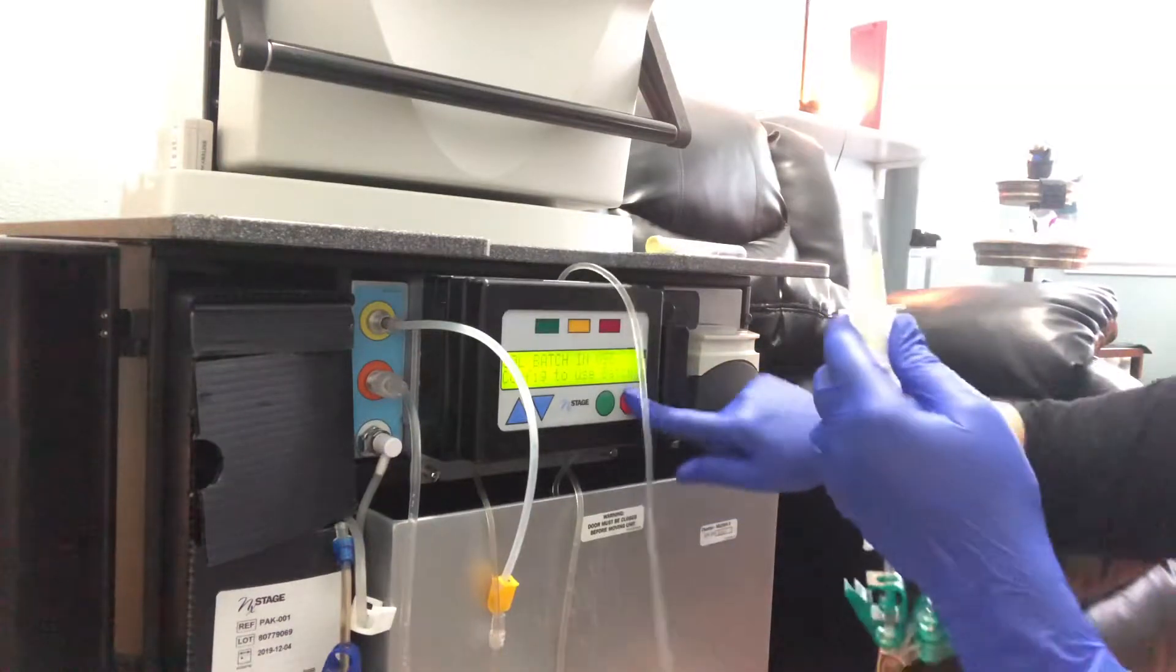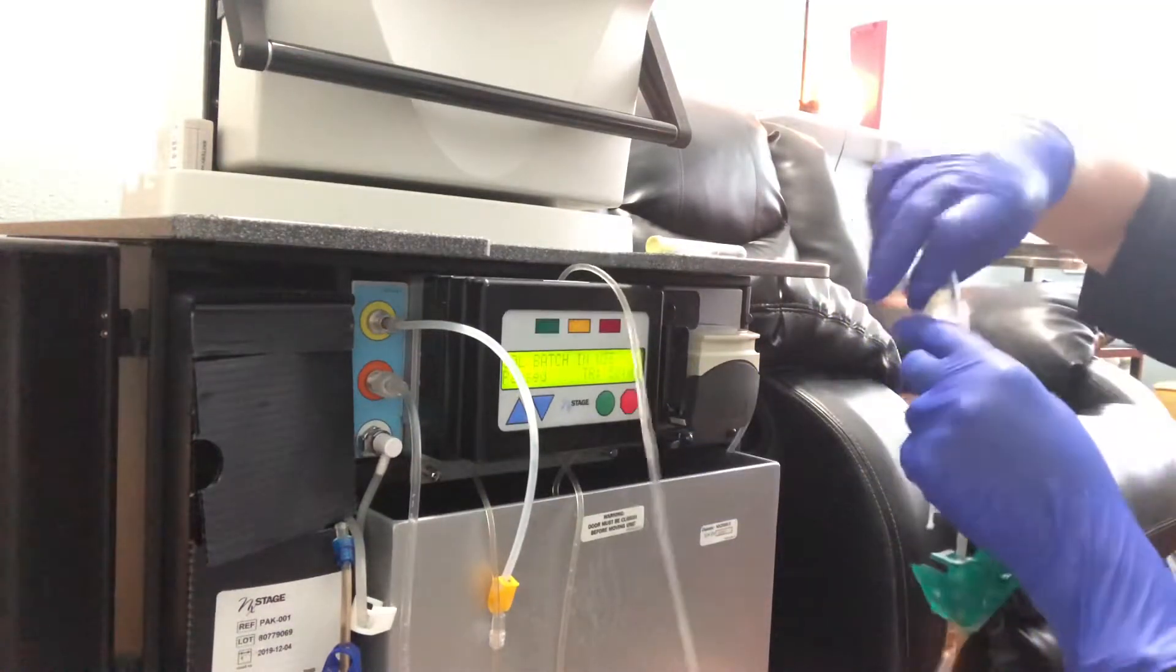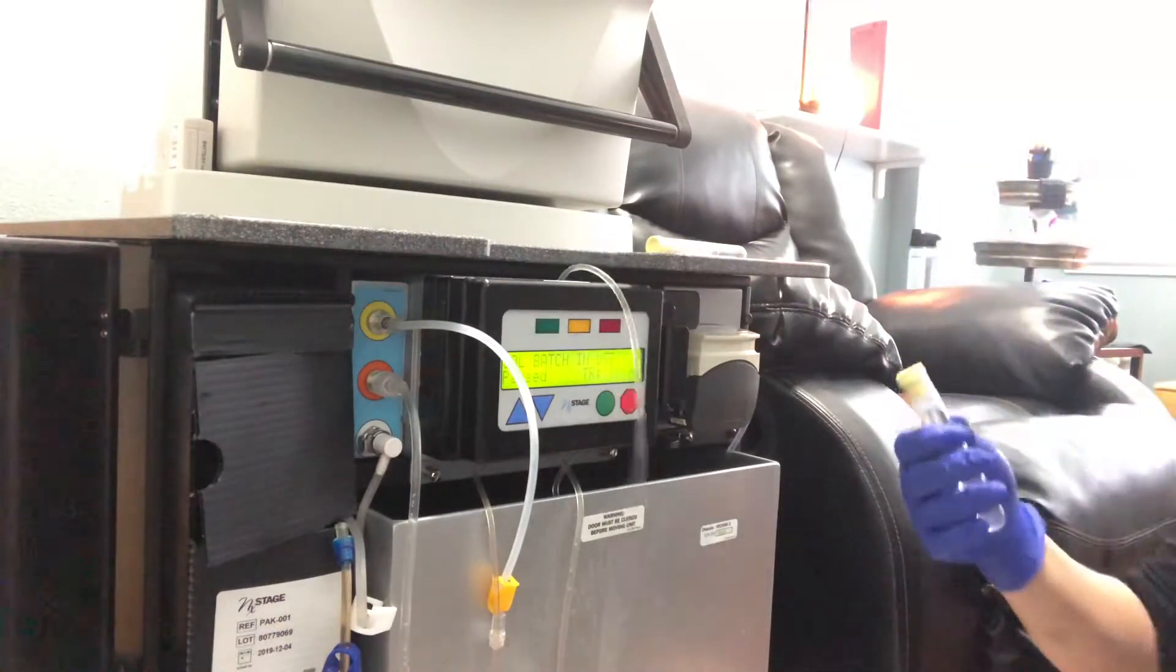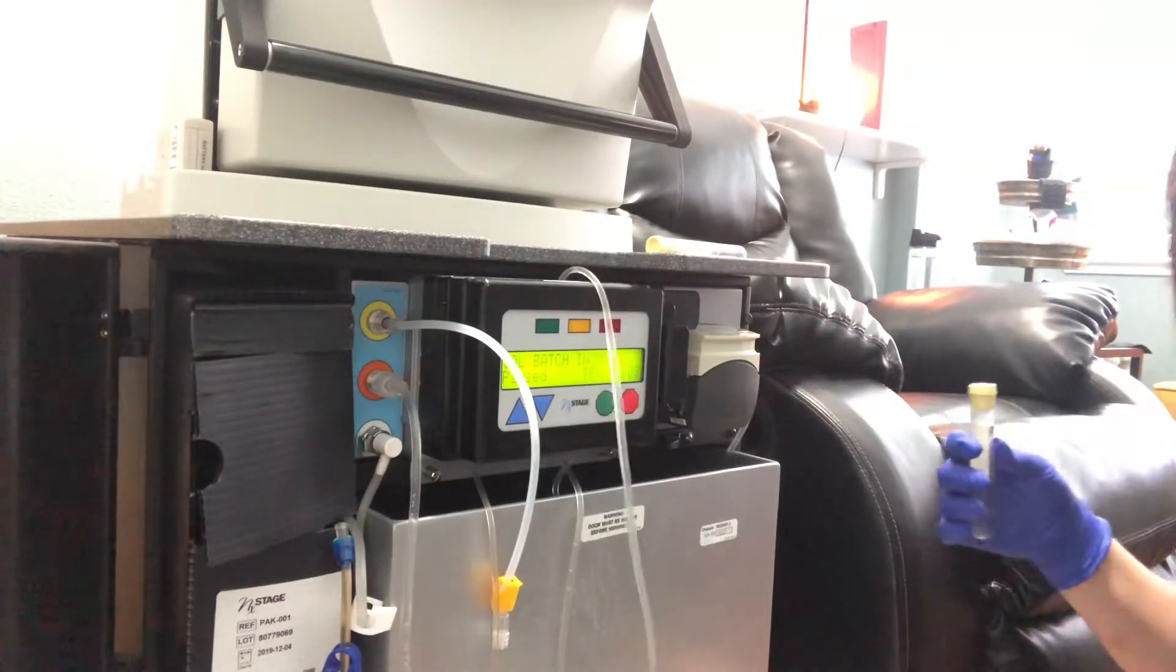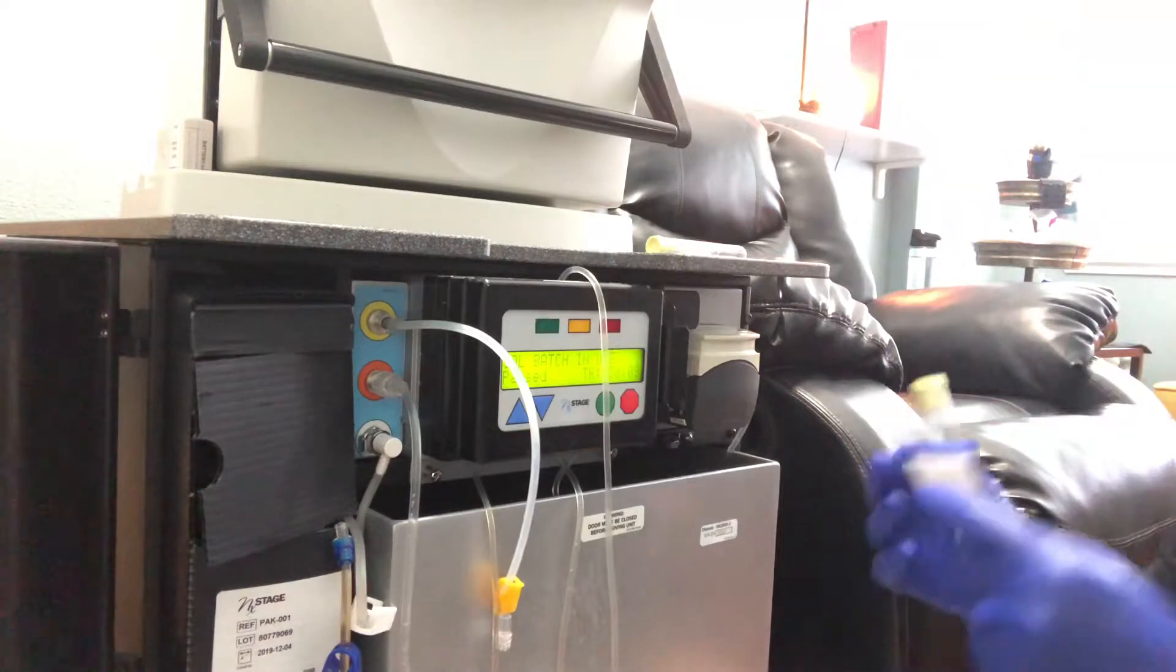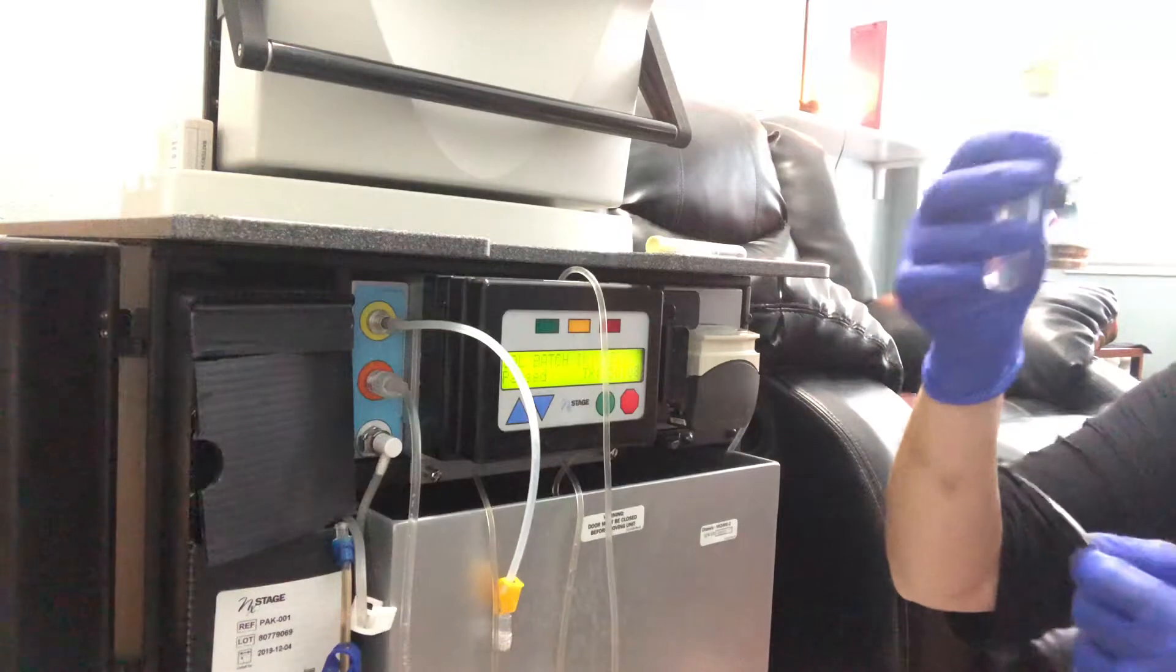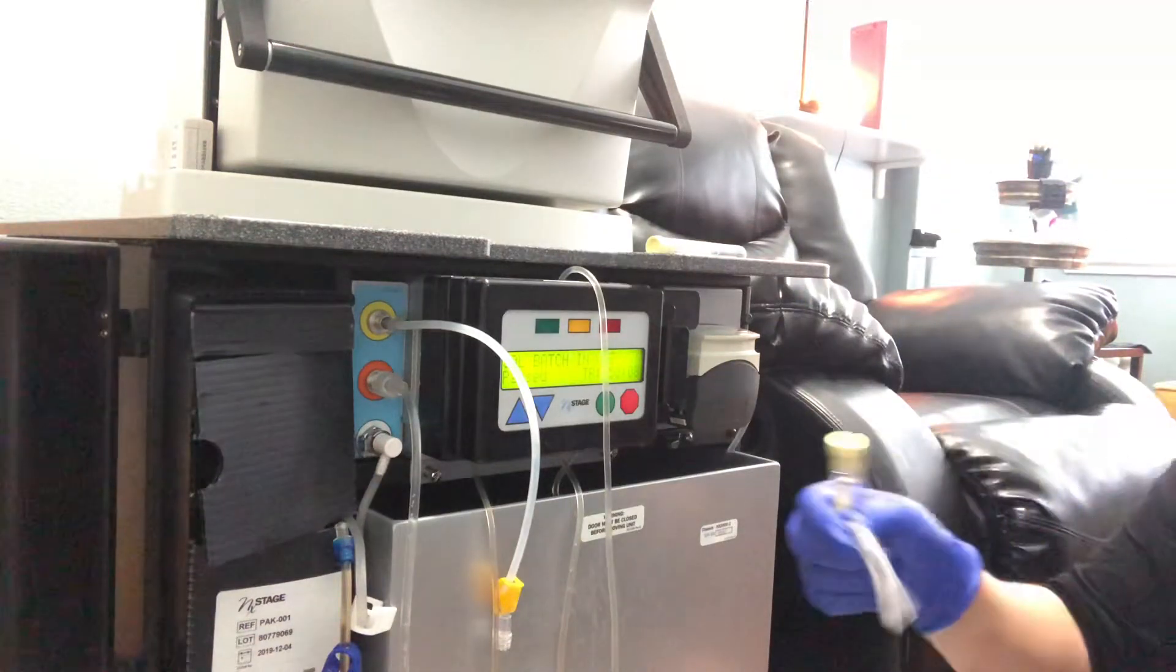Okay, now we're going to press stop. Using still using aseptic technique, I'm now going to put my labels on my test tube and send this and keep it on ice and give it to my clinic tomorrow when I see them.